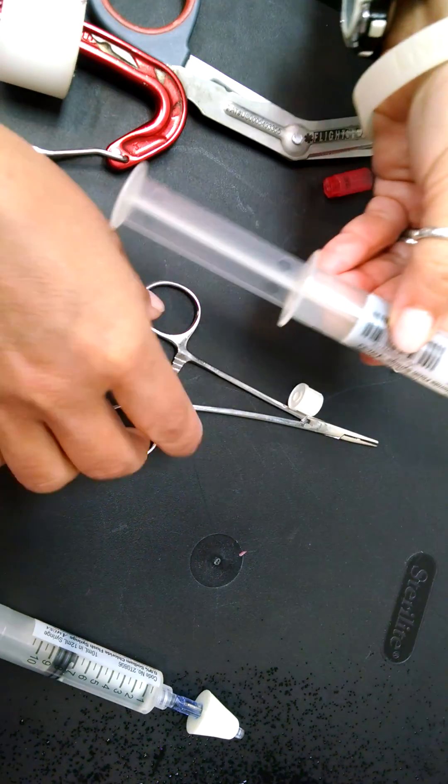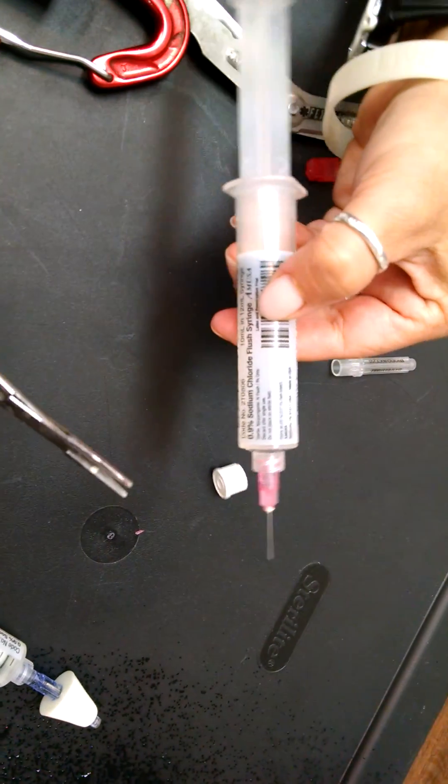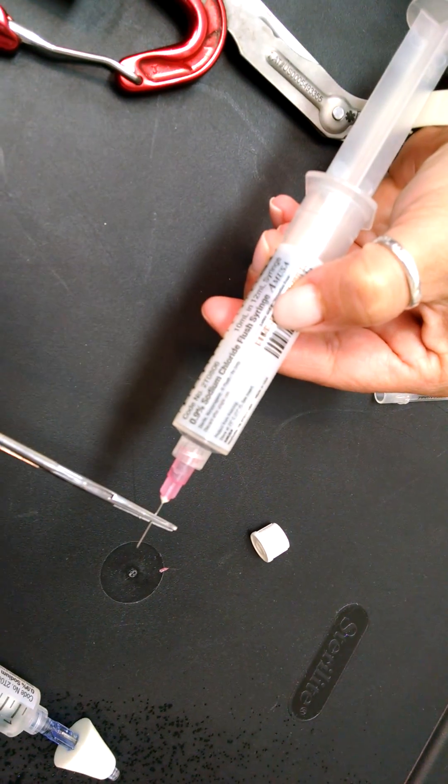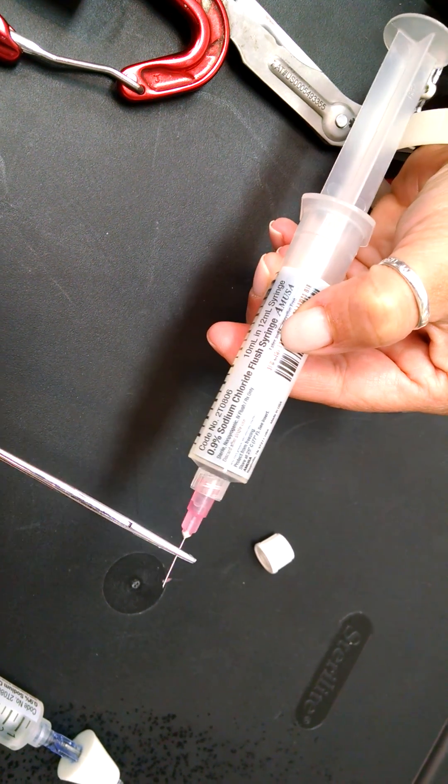What we're going to do now is take something such as a needle driver or a hemostat, grab the needle itself, and lock it down on there.